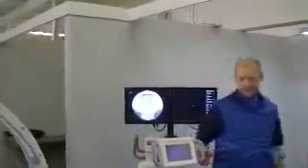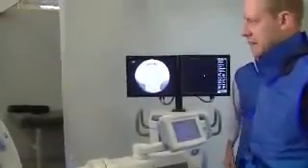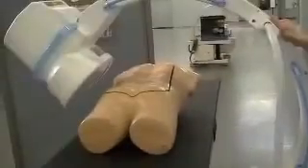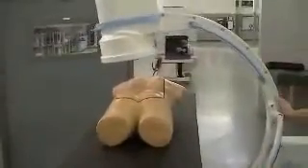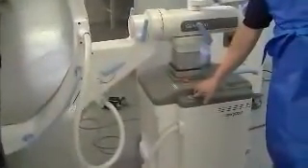Some of the basic movements here are pretty much the same as an OEC 9600 or 9800. One of the differences is you're going to have 45 degrees of over-scan. The only thing mechanical will be the vertical lift, and everything else you move by hand.